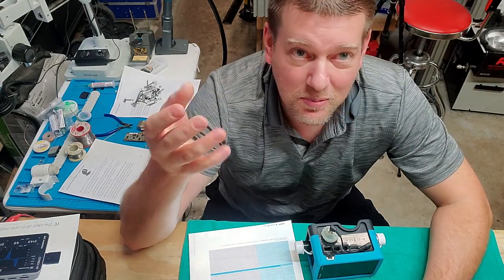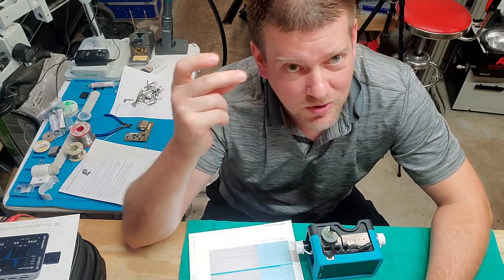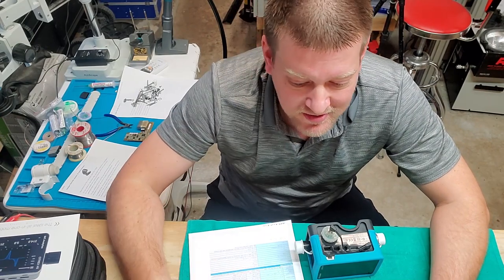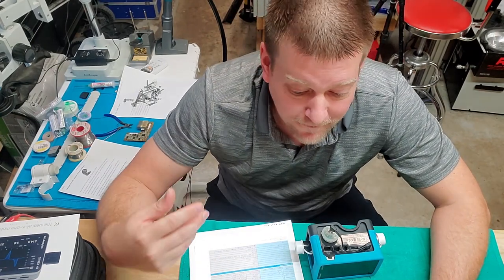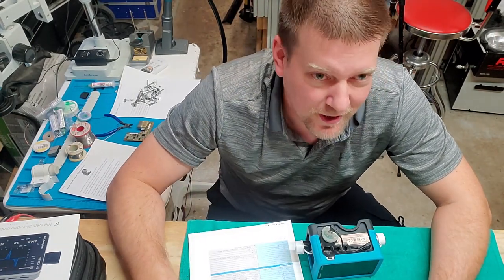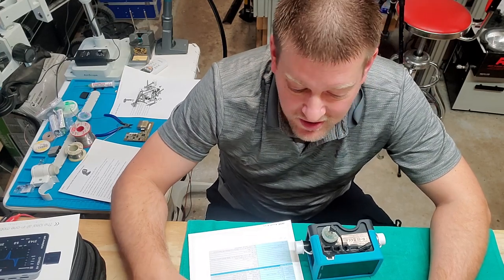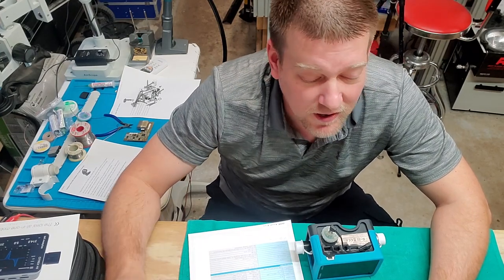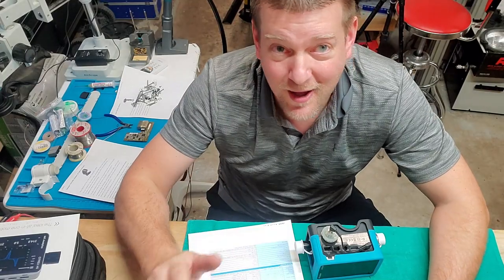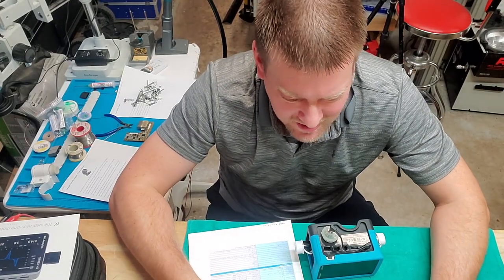It can measure temperatures and humidity. For temperature, it goes from 0 degrees to 50 degrees C, which is 32 degrees Fahrenheit to 122 degrees Fahrenheit — well within the spec of anything we're going to be measuring.